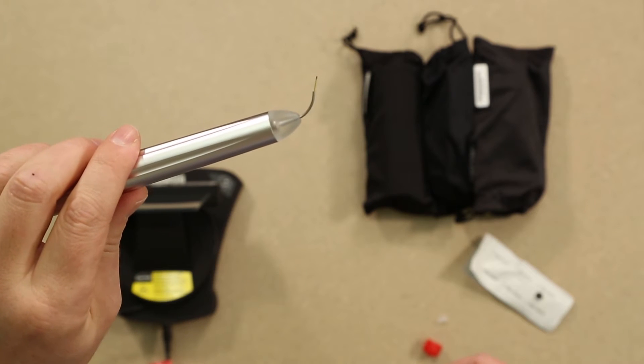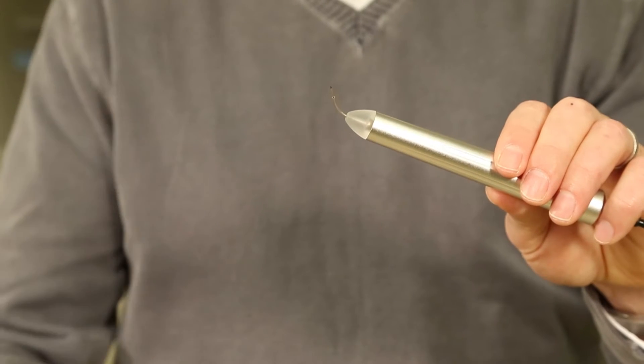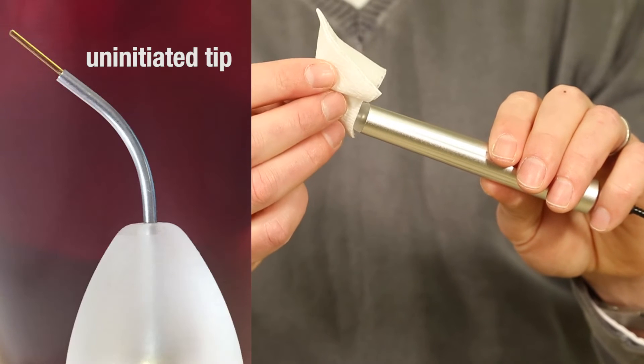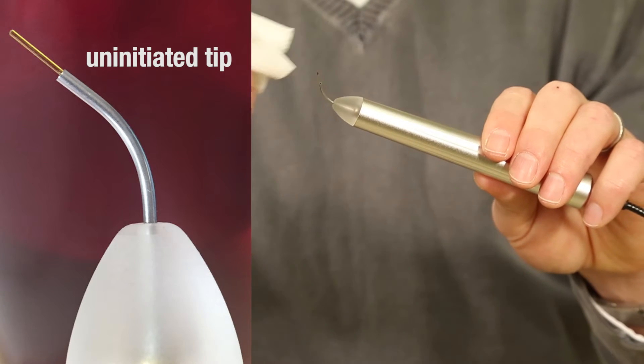If the procedure you are performing does not require an initiated tip, wipe the tip with alcohol and a clean gauze to remove the pigment from the tip.